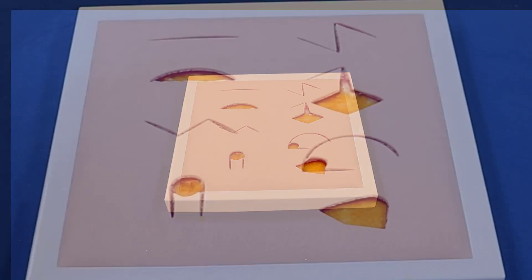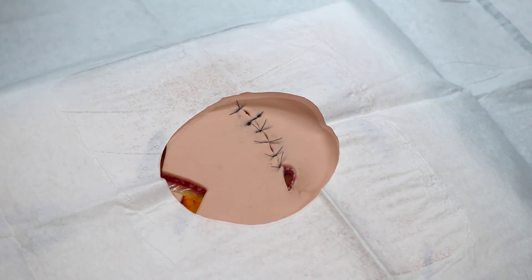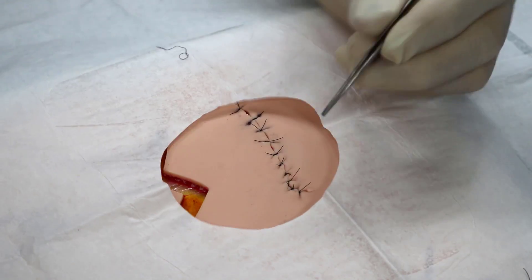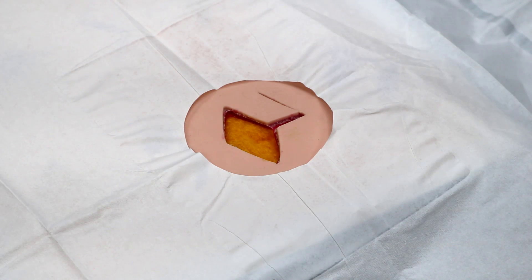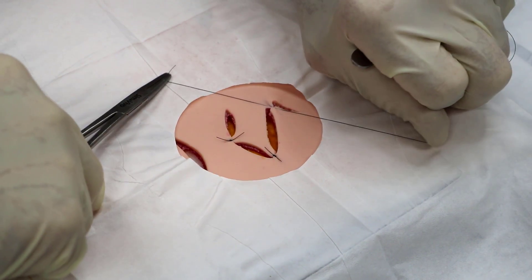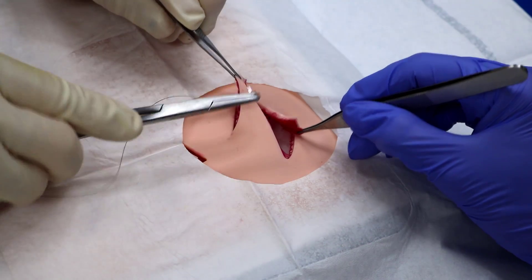With SimSkin Advanced, you can explore a wide range of complex procedures. Our integrated curriculum offers practice opportunities for managing dog ears, advancing simple flaps, rotating rhomboid flaps, creating z-plasties, and more.